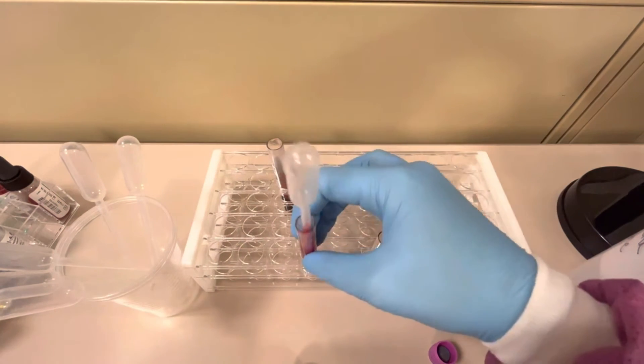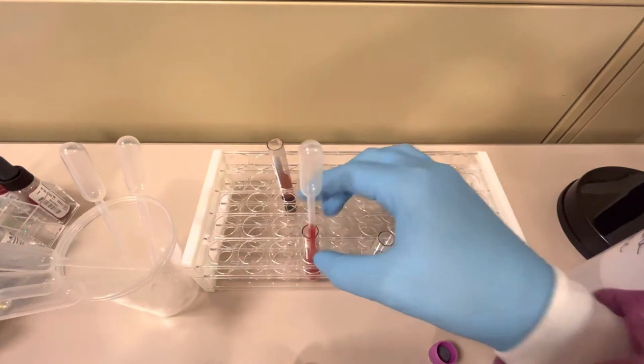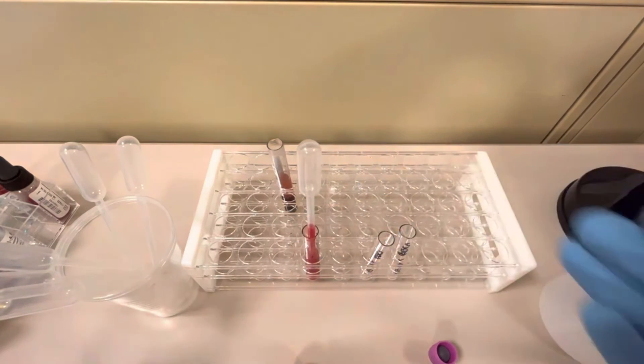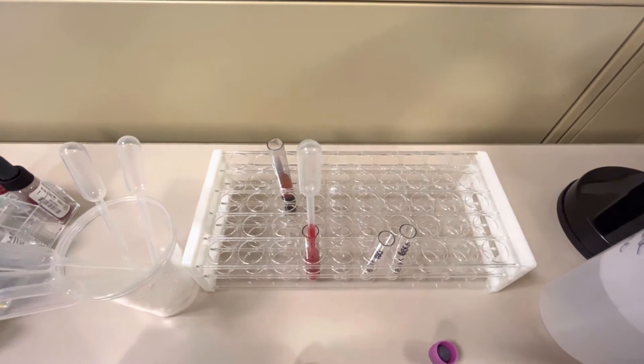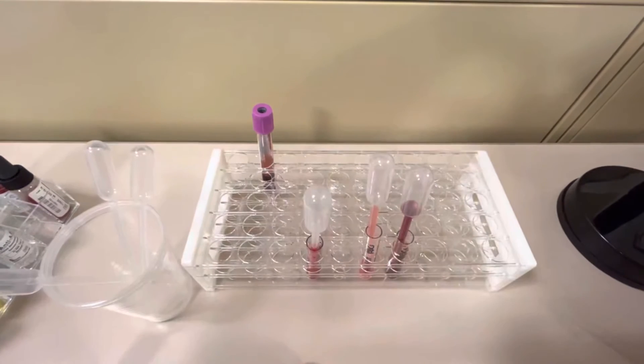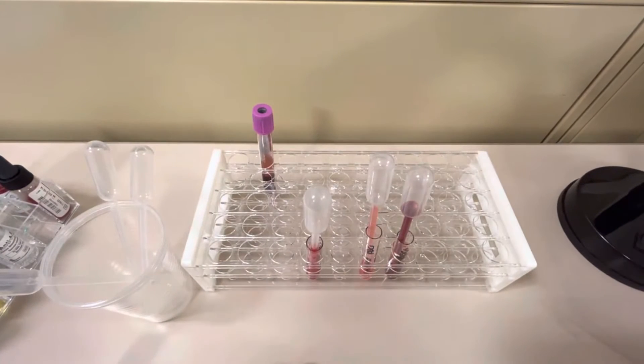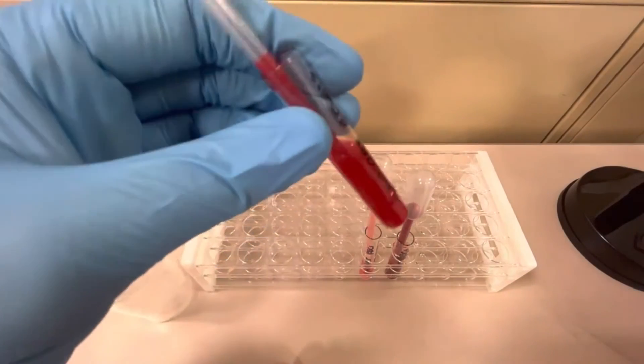So this is the correct way to do it, and what I'm going to do is stop the video, make them incorrectly, and then show you how they look when they're wrong. Alright, one moment. I'll be right back.